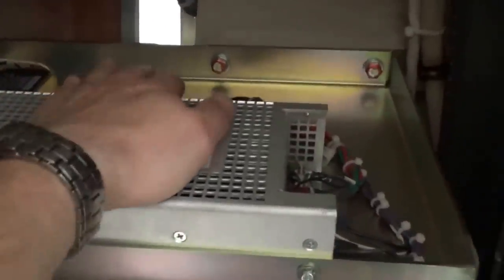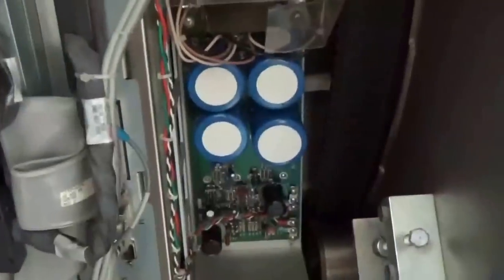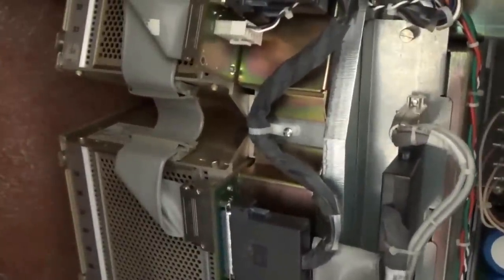The gantry actually rotates around the patient, so we have the x-ray tube. The x-ray tube fires through that port to the patient. Radiation penetrates the patient, comes around to the other side, and this is called the detector. This great big curved area here — you can see how large it is — has all these large power supplies to drive it. There are 48 circuit boards in here, and this is called your DAS — D-A-S — which stands for Data Acquisition System, or Data Acquisition Subsystem.